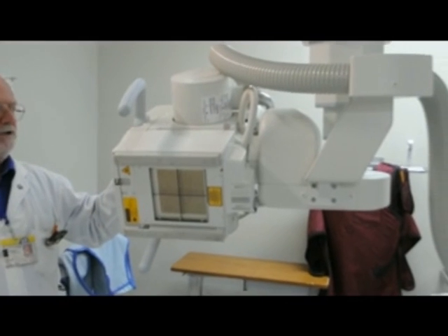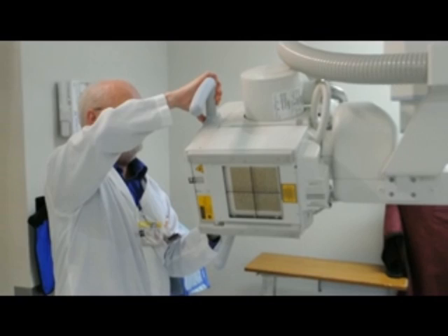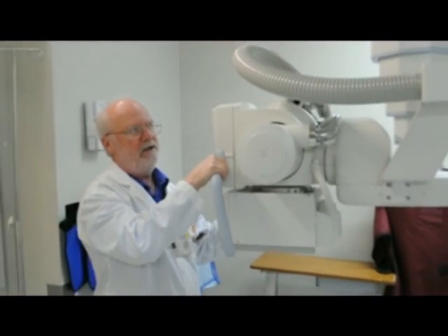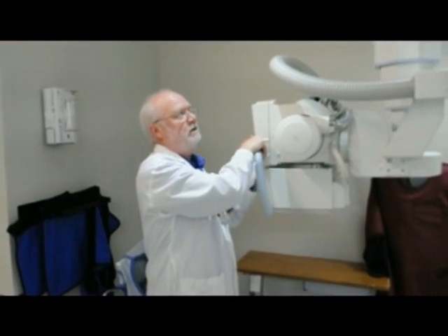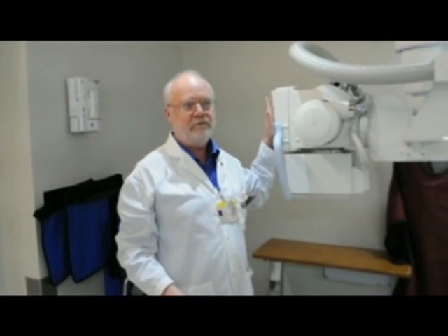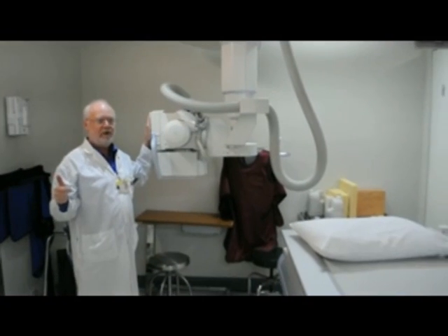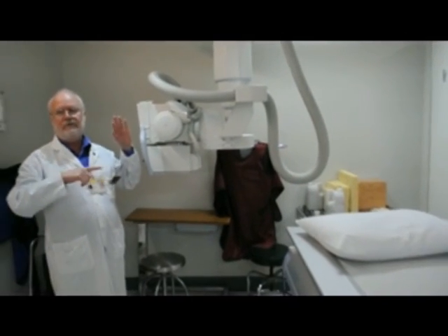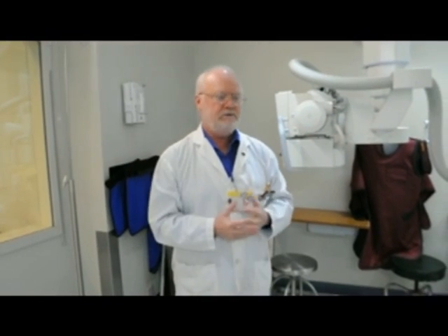It's a fabulous piece of equipment, and it's all totally digital — really, really low-dose radiation. It really helps the technologists do the cases, especially for trauma patients from car accidents. It helps the medical radiation technologist get the best images the fastest way. They get sent to the PAC system quickly, so doctors can view them from various areas throughout the hospital and even different hospitals right away.